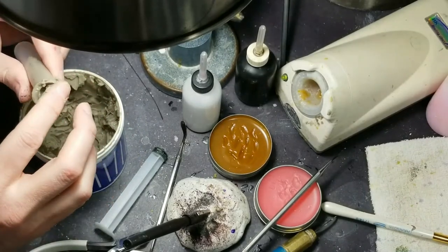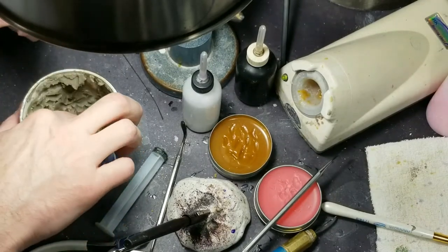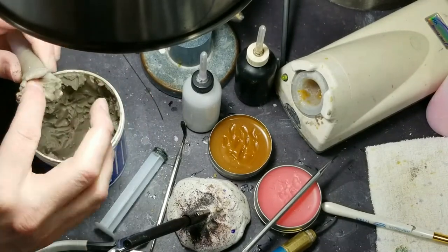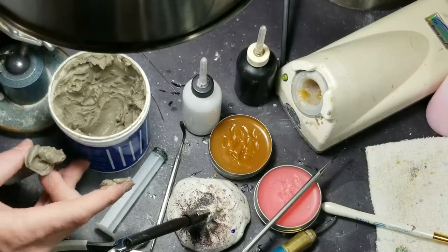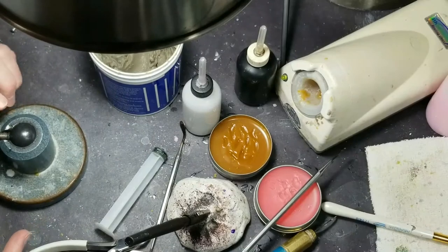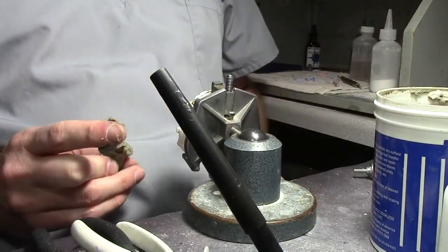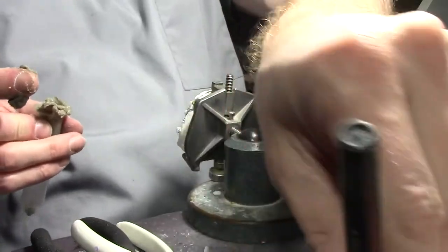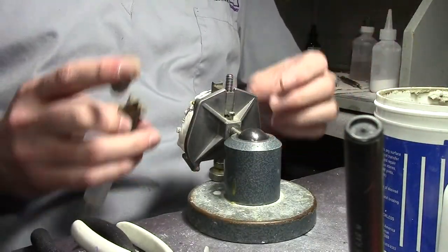I have a model holder when I make clear bow retainers — it's handy for clamping and holding to form. Do you hold it off the edge of the table like this? I don't know if you can get a shot of this. And then do your clear bow off so you have the long end hanging. When I used to do clear bows, that was perfect — they can just hang off the table.